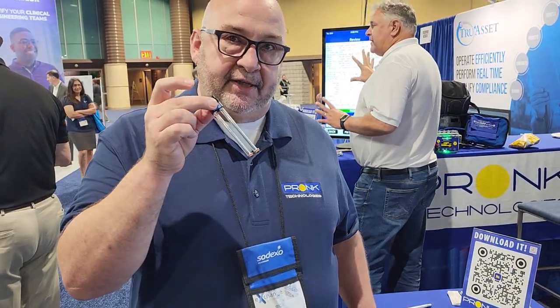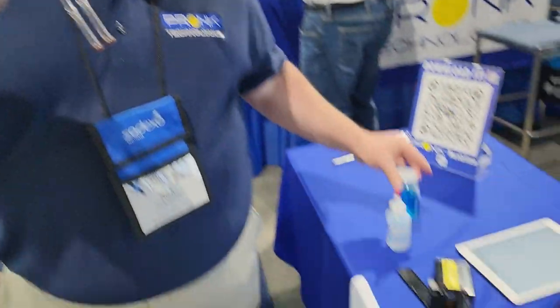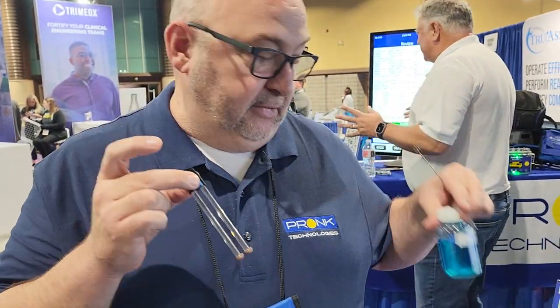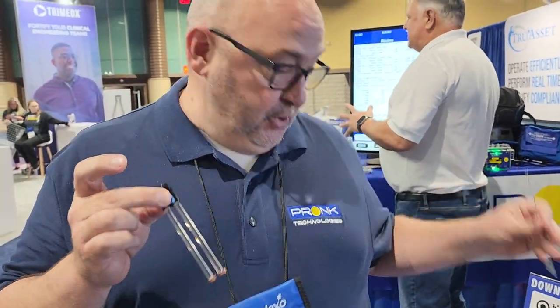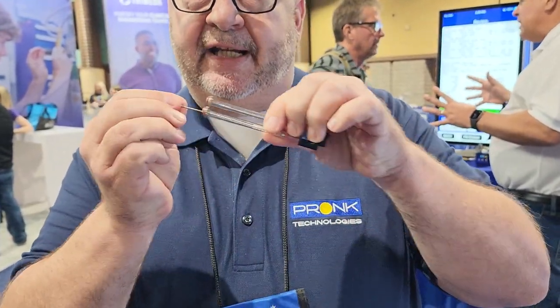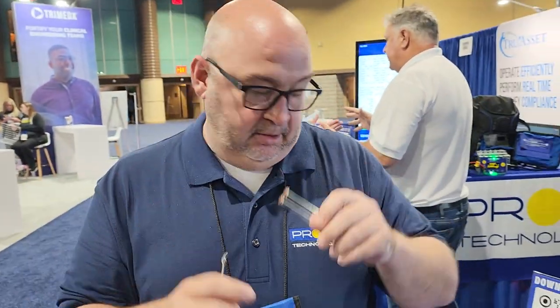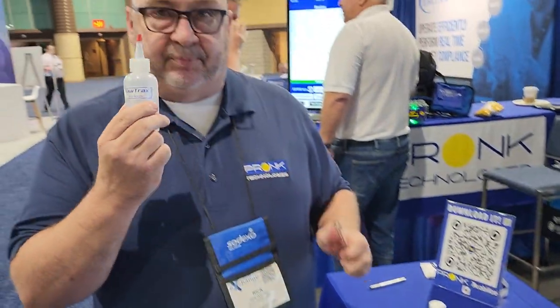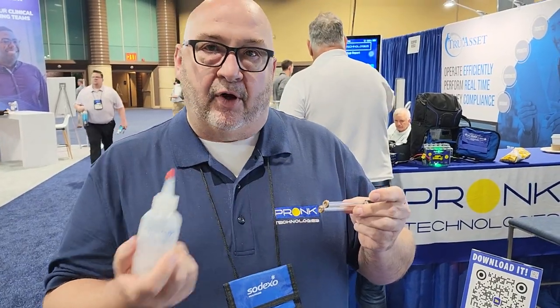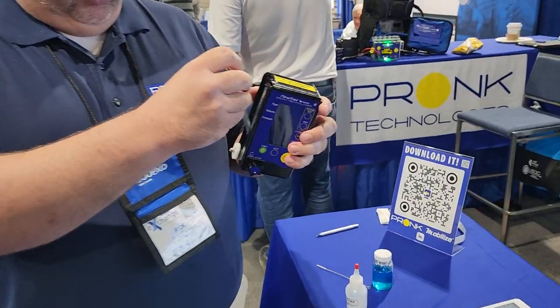We give you in the kit the tools to do that — we have a bottle brush and the ultra secret cleaning solution, which if you think it's Windex, it is. You dip the bottle brush in the Windex, put it in the tube, and run it in and out a few times on both of them to get them good and clean. Then use the supplied distilled water flush to rinse out all the Windex, and reinstall.